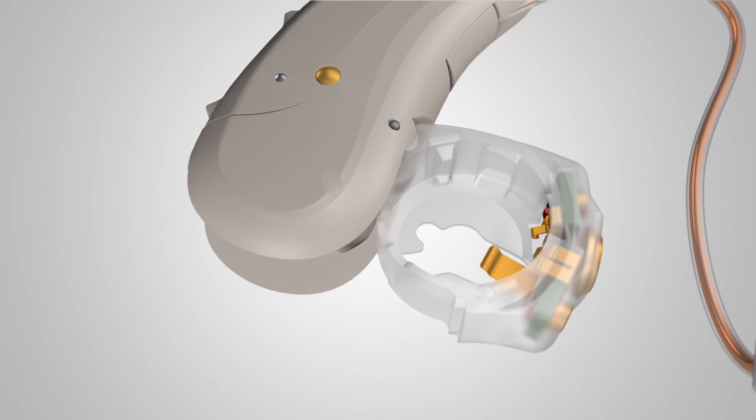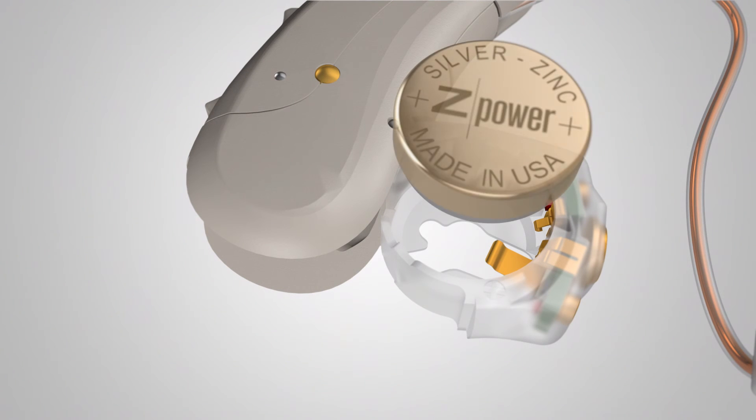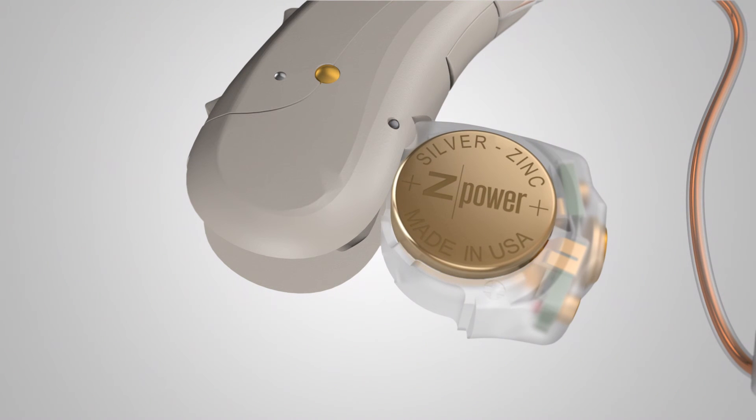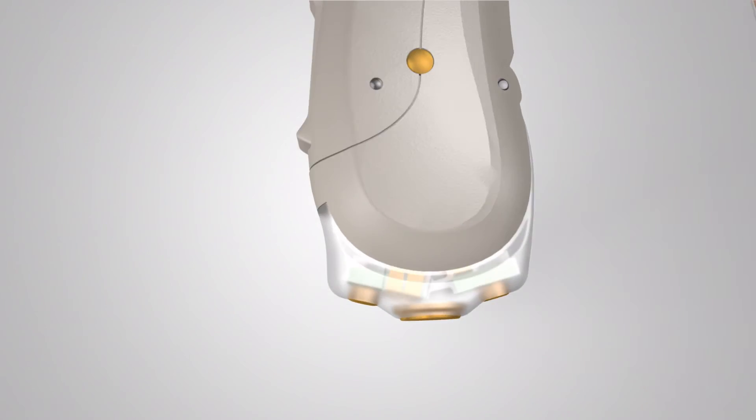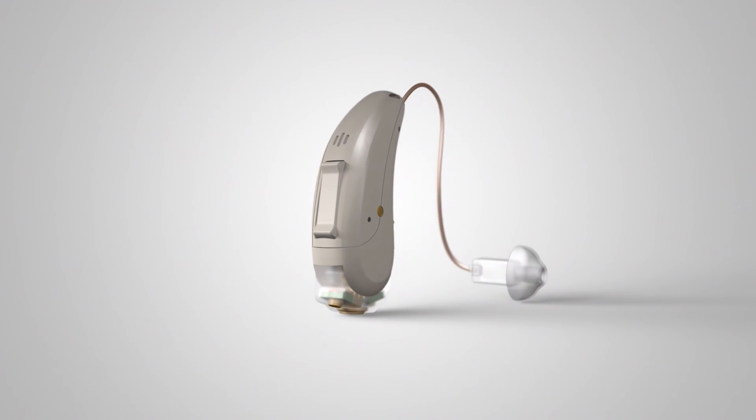Insert the Z-Power silver-zinc battery cell with our logo facing you, or up. Close the door and present the new Z-Power rechargeable system to your patient.